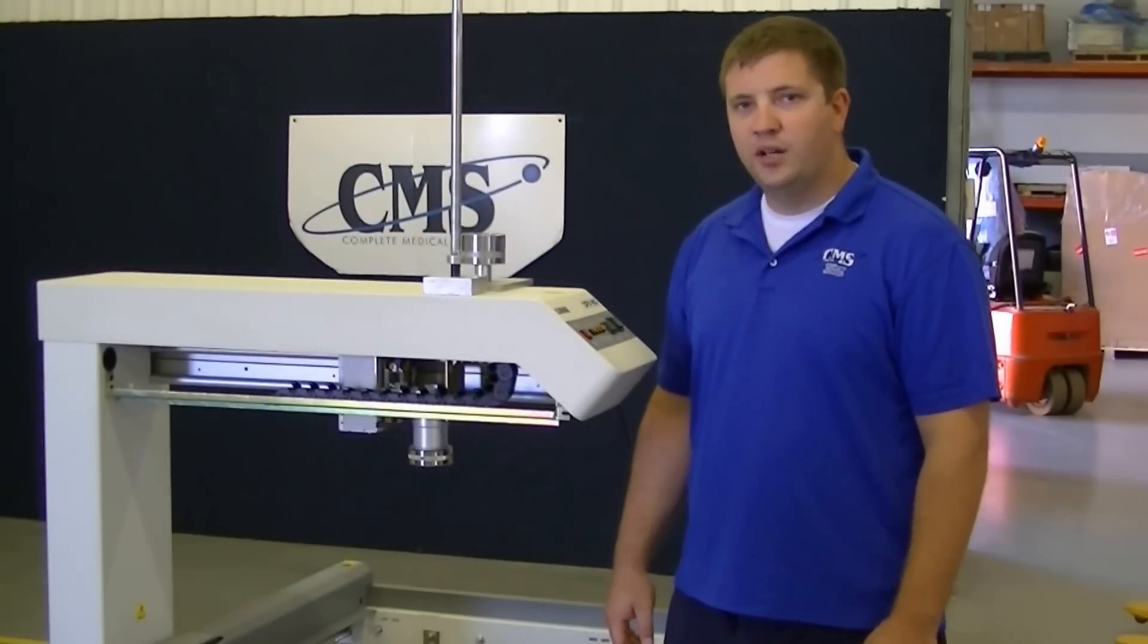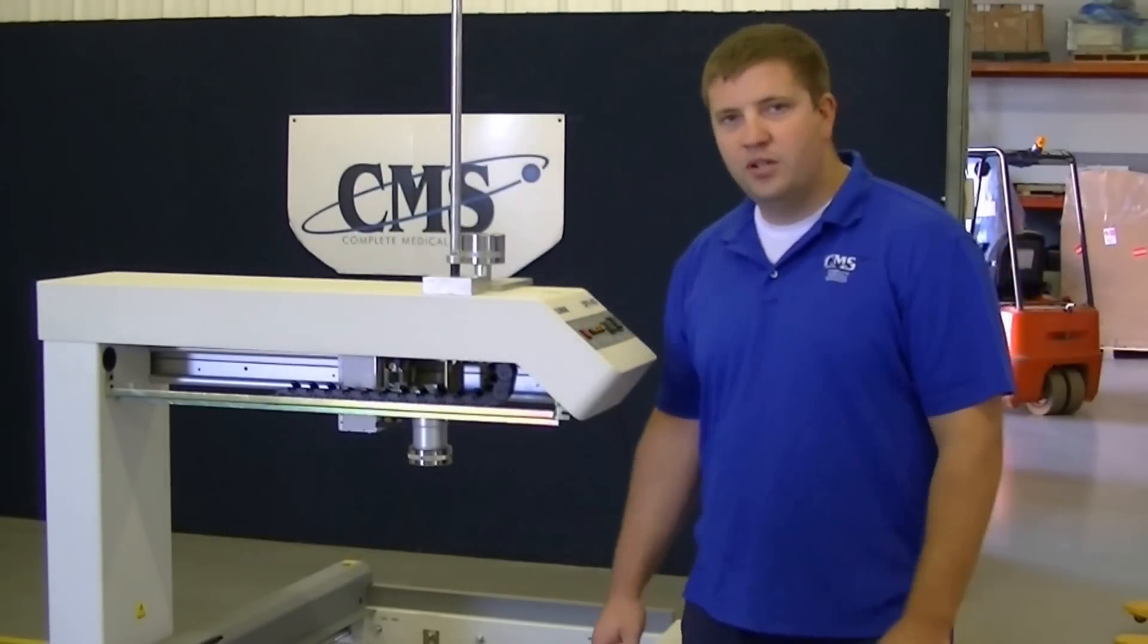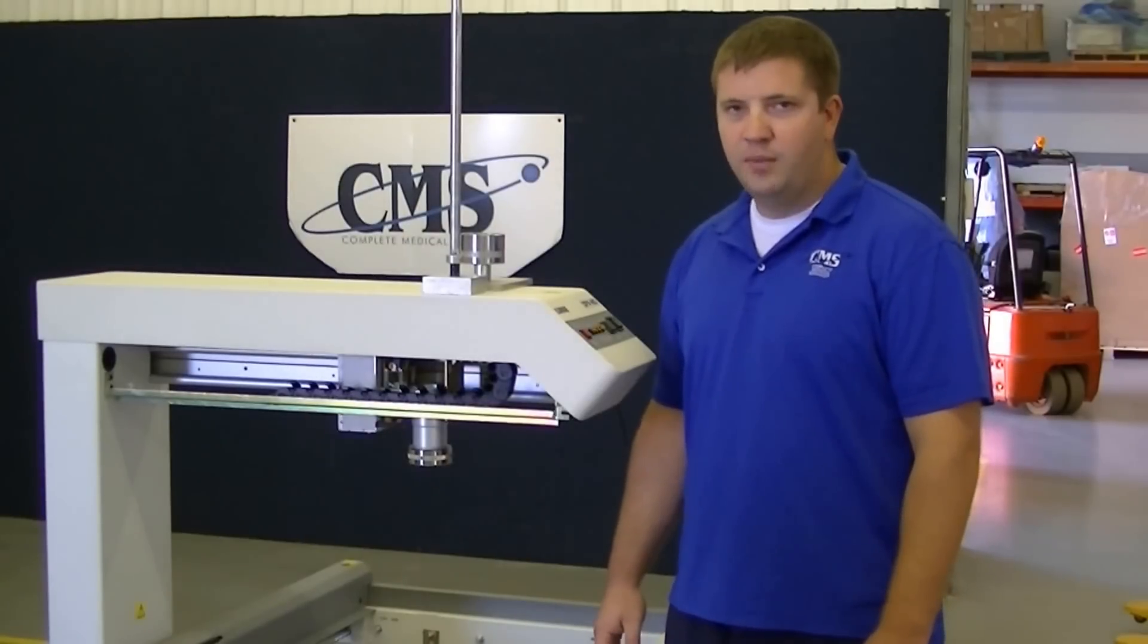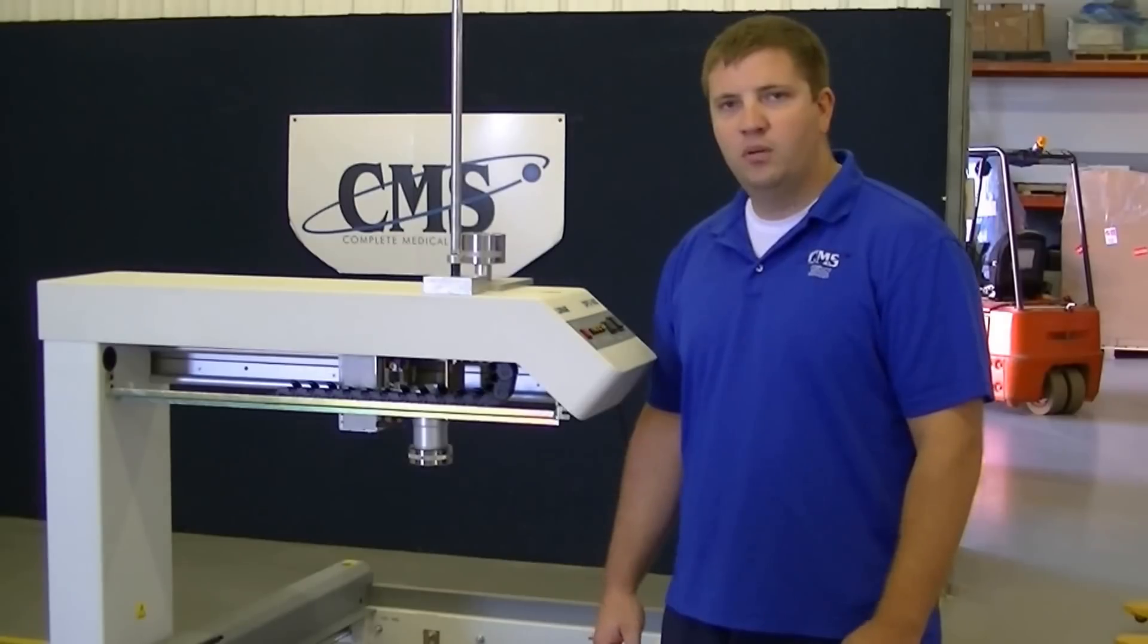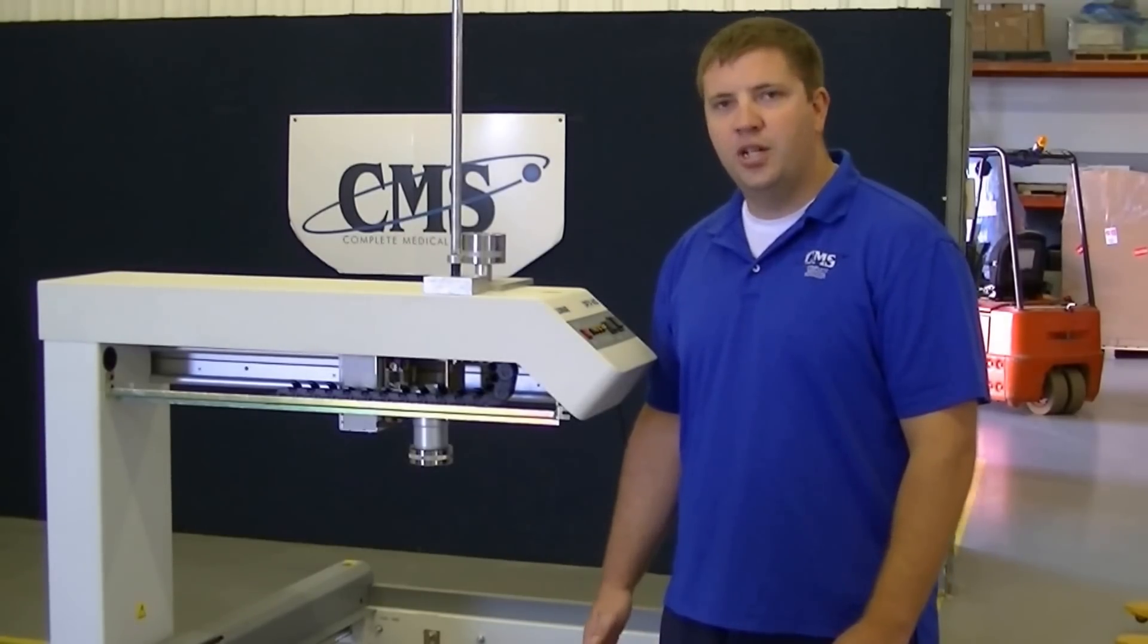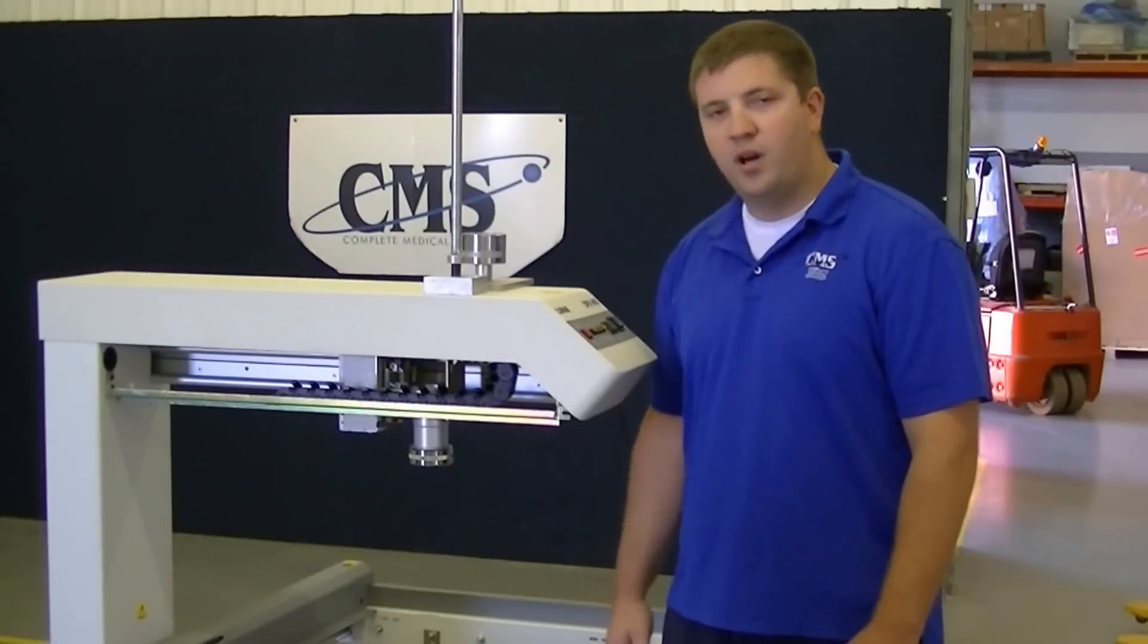This video is going to explain how to align the tube head on the DPX IQ. This procedure is also for the DPX MD, the Bravo, the DUO, and also the Prodigy. Anything that's GE made, this will work for all of them.